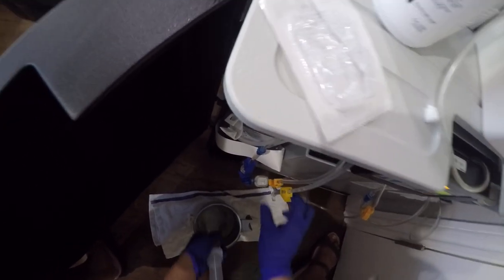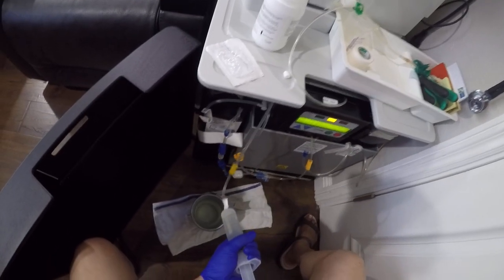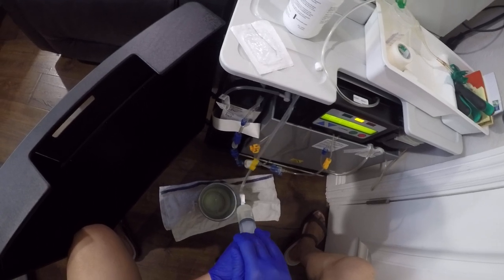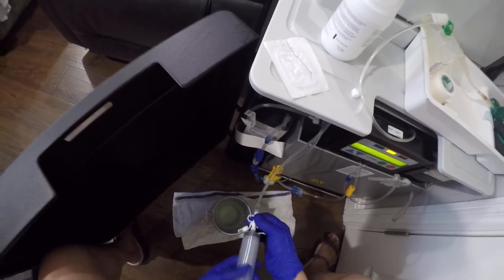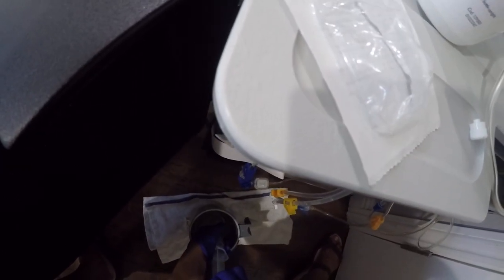You can do this while you're making a batch. As you can see I'm making a batch — we make a batch the day after treatment. So every other day you make the batch, and every other day is a treatment.